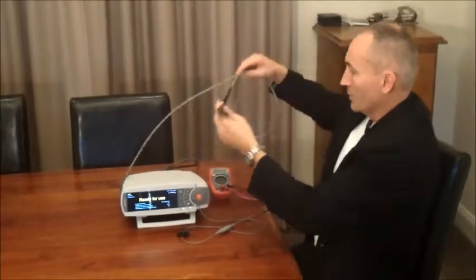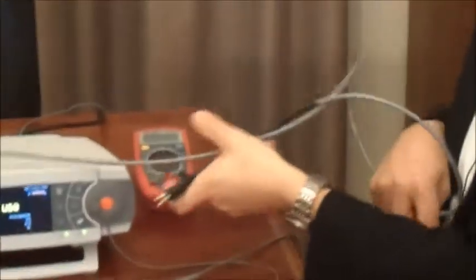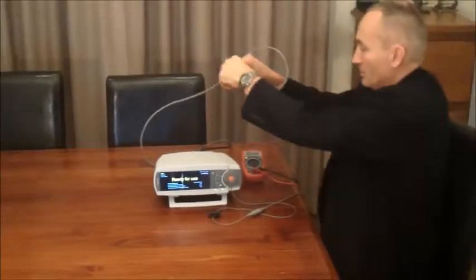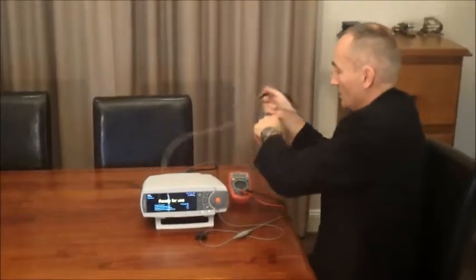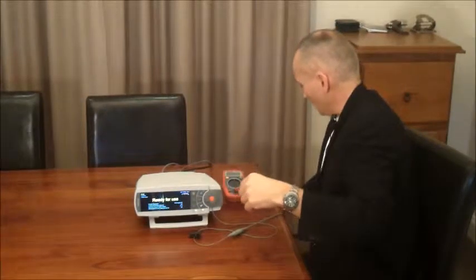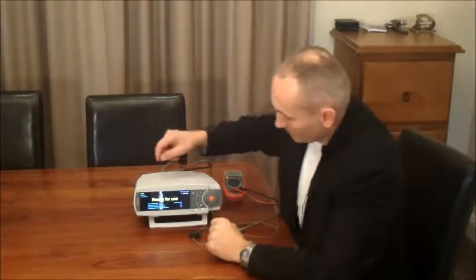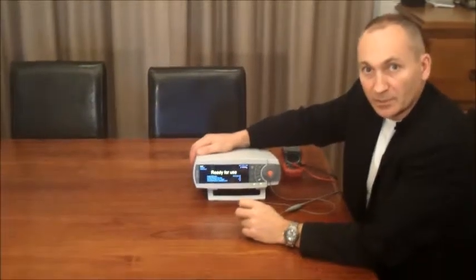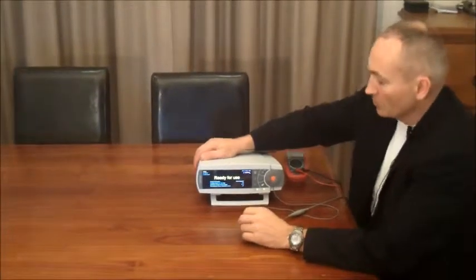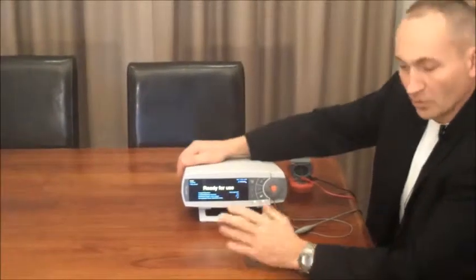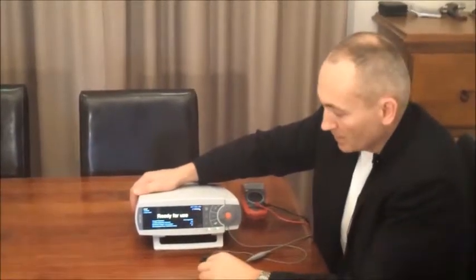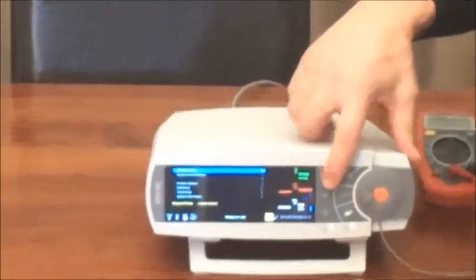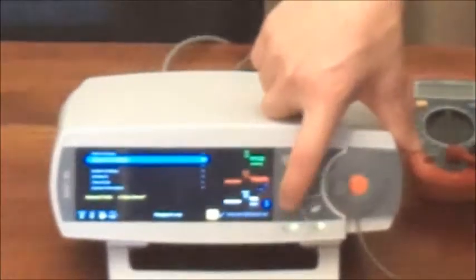Ordinarily you then take these and assign them to the various ports on your DC interface box. For now we're not going to do that; I'm just going to show you on the software where we go to calibrate that interface. So presumably the CompuMedix or Alice or Embla system is getting a signal from the CO2 machine, but let's give it a standardized signal so that we can calibrate the software.